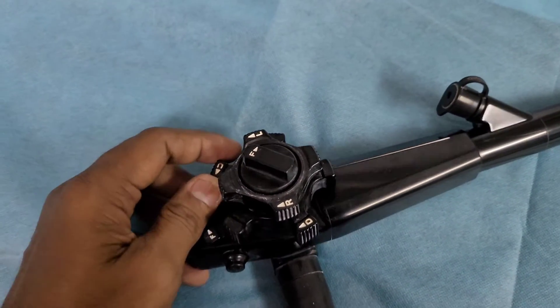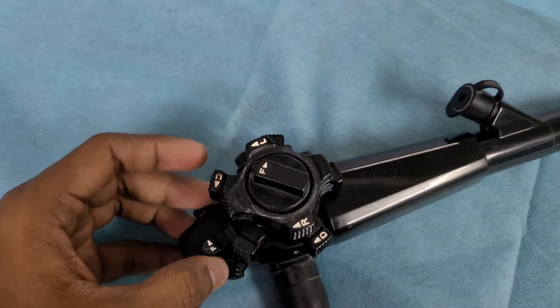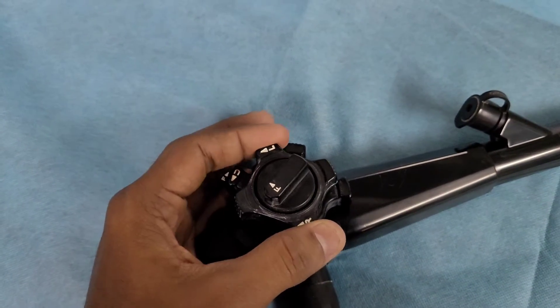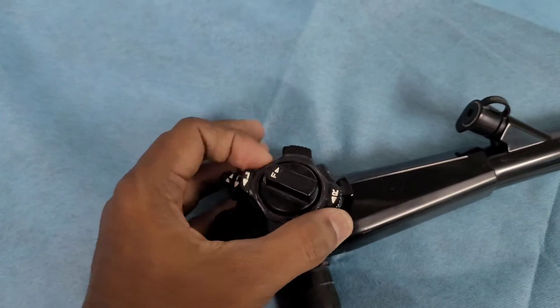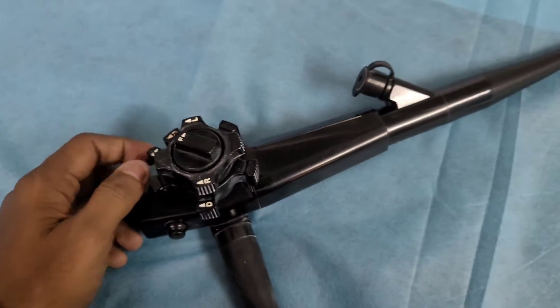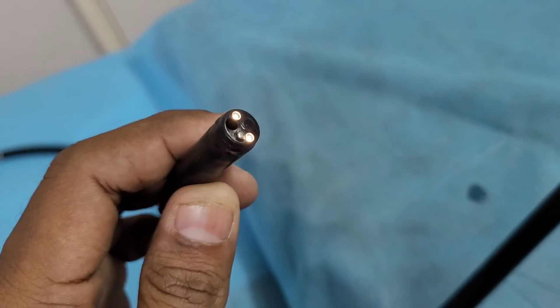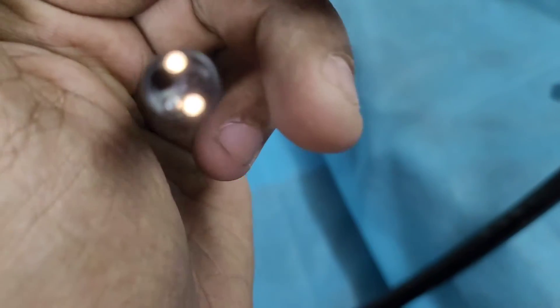When you pull up the F-button lock, the wheel does not come easily. When you release that button, you can easily rotate it. If you lock the F-button, it won't move anywhere.